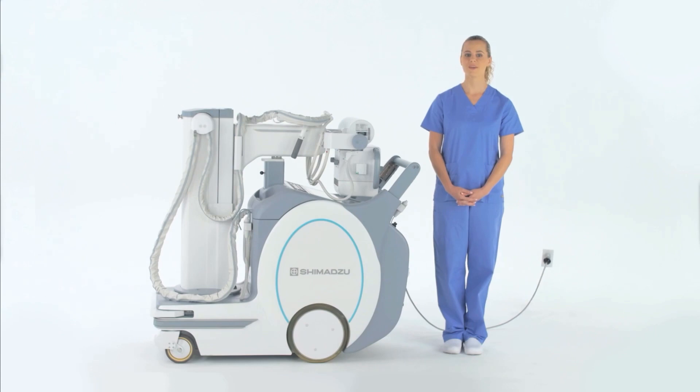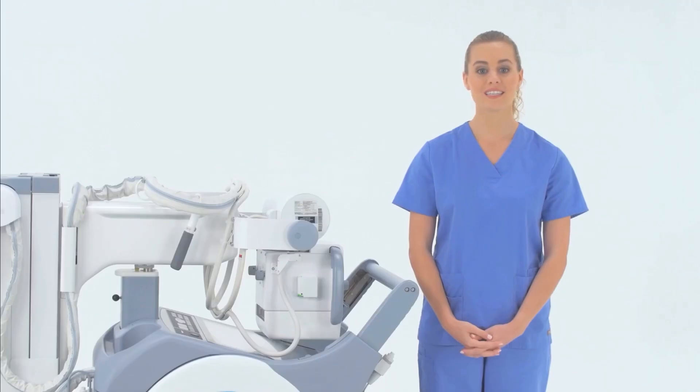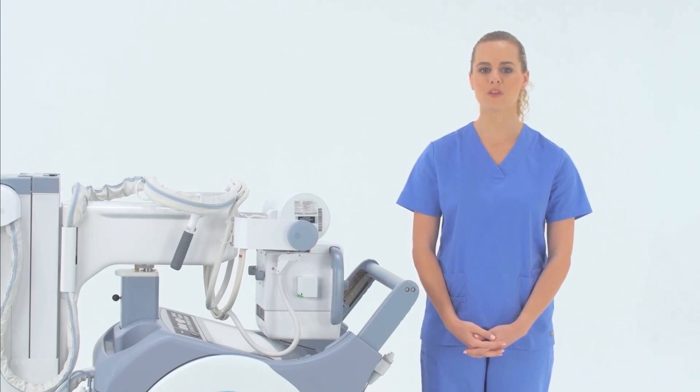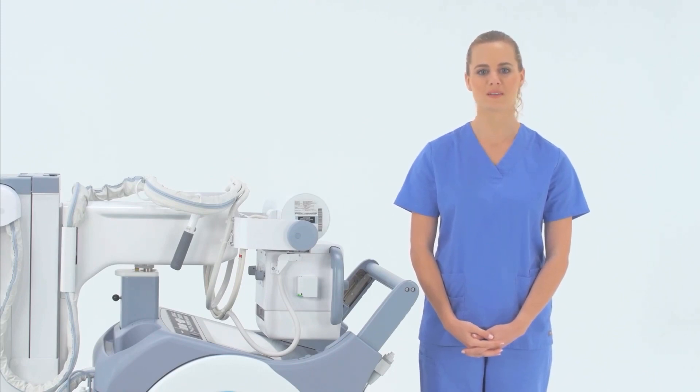The new MX8 mobile system is designed to provide rapid, powerful examination support with enhanced visibility and refined mobility in nearly any situation. Today, I will be walking you through how to properly use this cordless mobile x-ray system as well as highlighting all of the new and updated features.